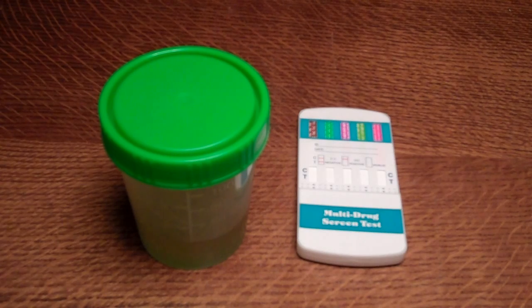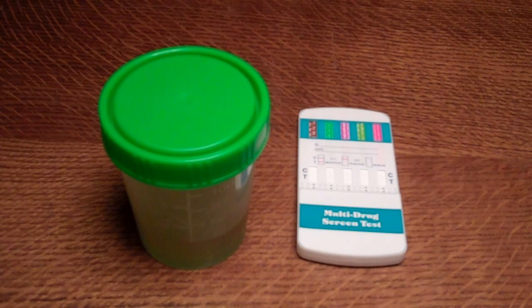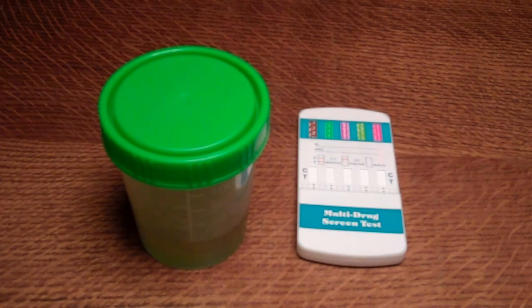It's popular basically because it gives you one of the easiest and longest window periods for detection of drugs after they've been used. Now when we talk about window periods for drug detection, we're talking about the time after a drug has been used that it will still be detectable in a drug test.